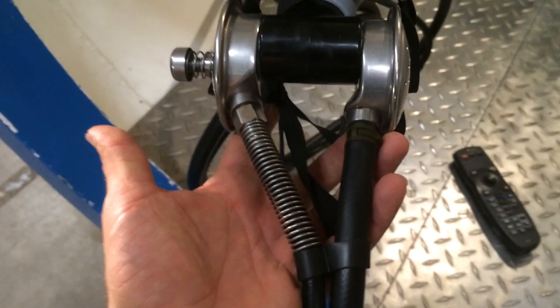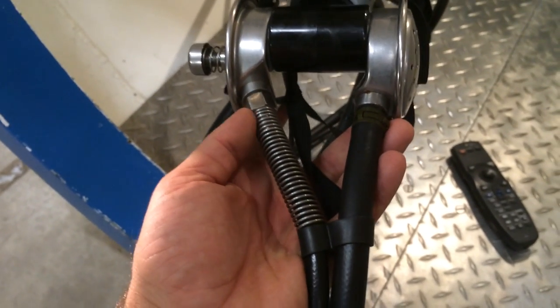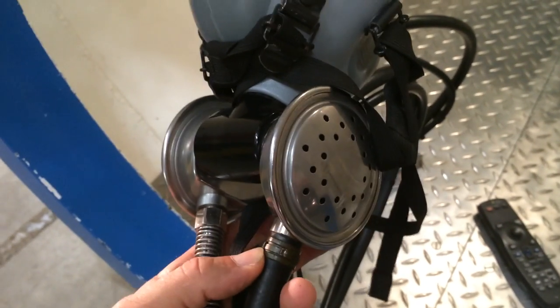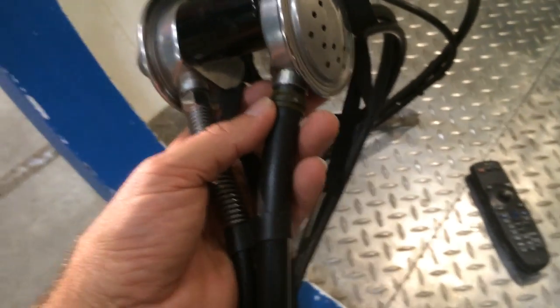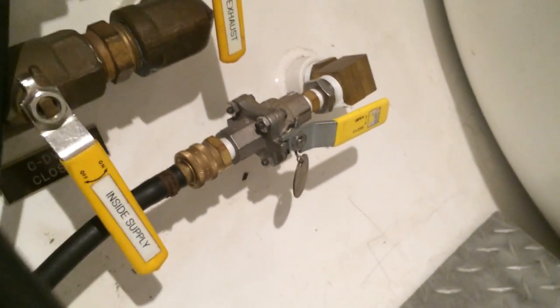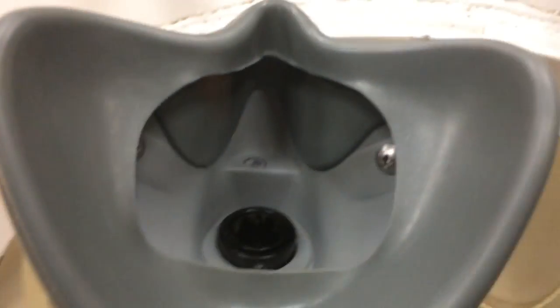On the left side is the supply line; on the right side is the overboard dump. There is a small regulator on the side that takes the gas, and when you exhale, it is delivered out through that hose, down through a ball valve, and then outside the chamber. That ball valve is the hull stop for the overboard dump and must be open while you are breathing oxygen in order to exhale. These masks are very difficult to exhale through on the surface because there's no chamber pressure to help the back-pressure valve work.